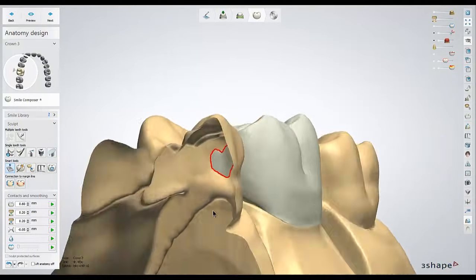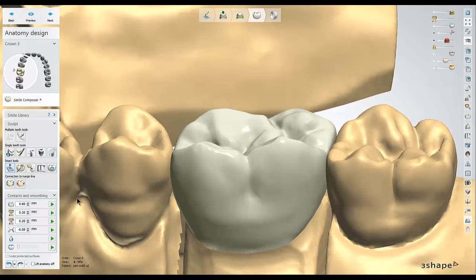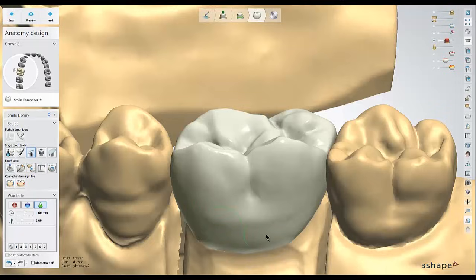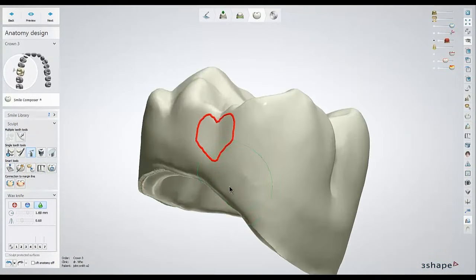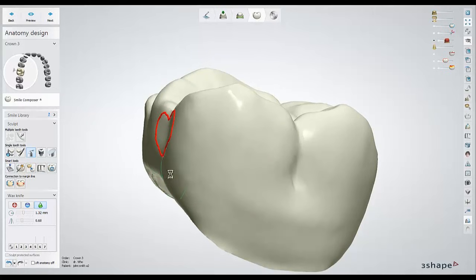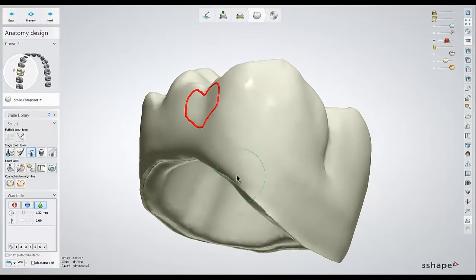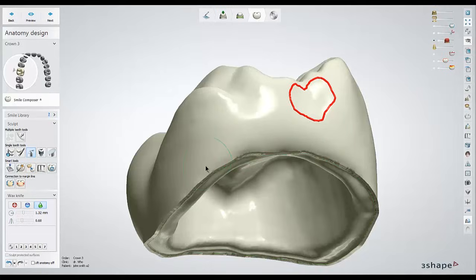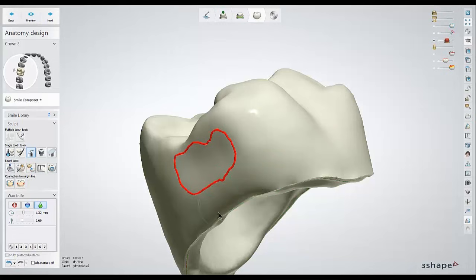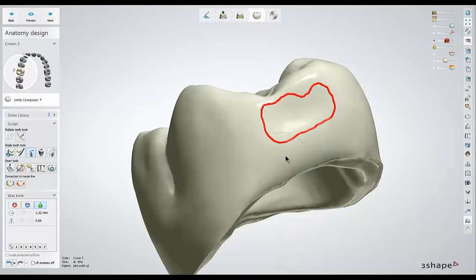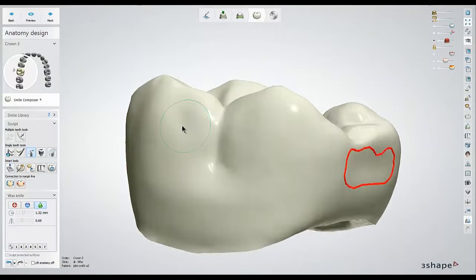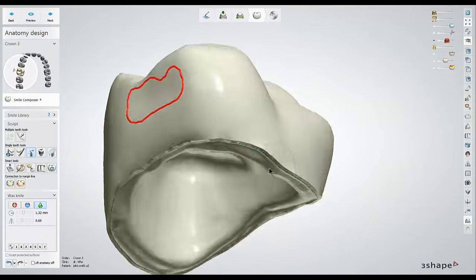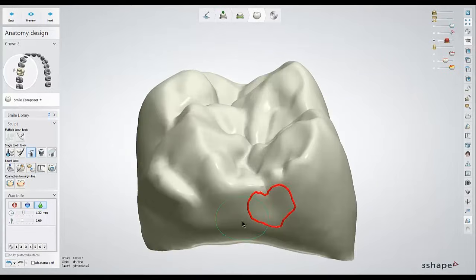Now that I've set all of my contacts and thicknesses, the next tool I'm going to use is the spray can icon, or the wax knife tool. This is where you have your simple addition, reduction, and smoothing tools. Usually the only thing I always do is a little bit of smoothing — the areas immediately underneath my neighboring contacts, to make sure there's nothing that would get in the way of the seating of the crown. You also want to do a little bit of smoothing all the way around the margin, since sometimes there will be ridges left behind from when the tooth was connected to the margin. This is also where I would make any final touch-ups to the anatomy, using the plus or minus tools to recontour or adjust the anatomy.